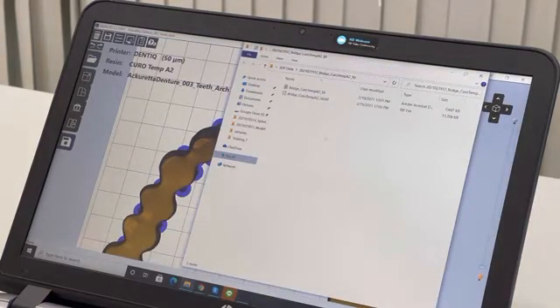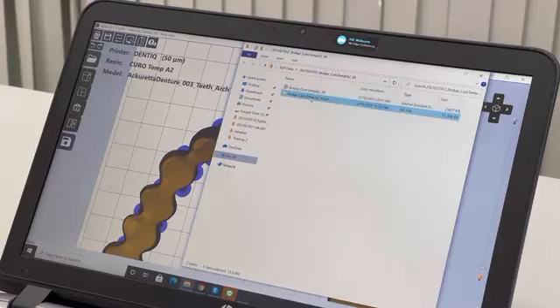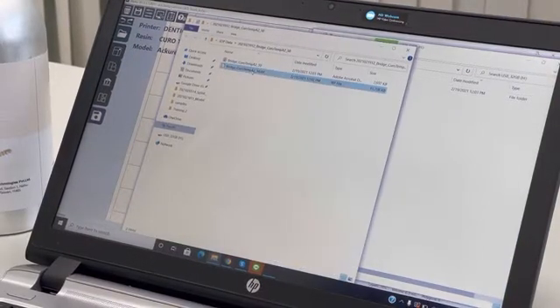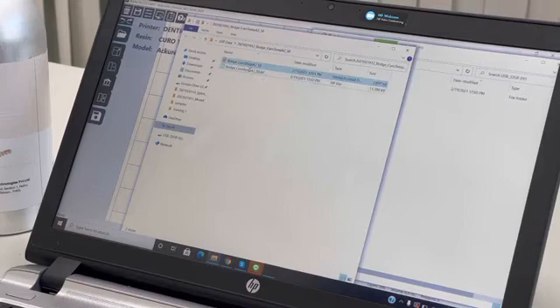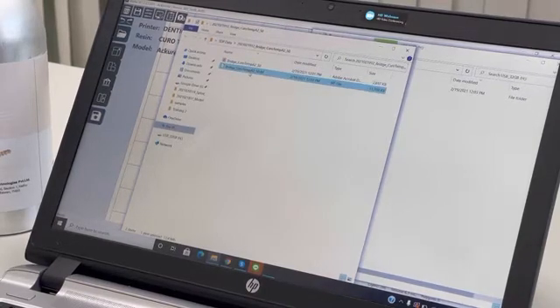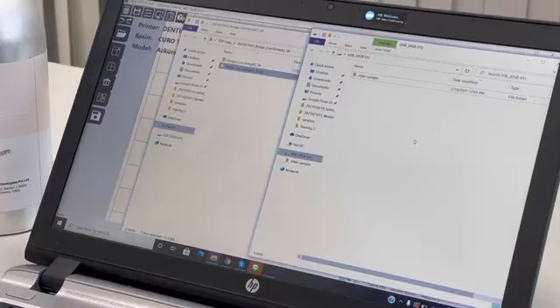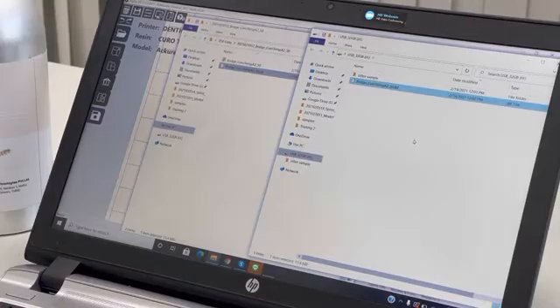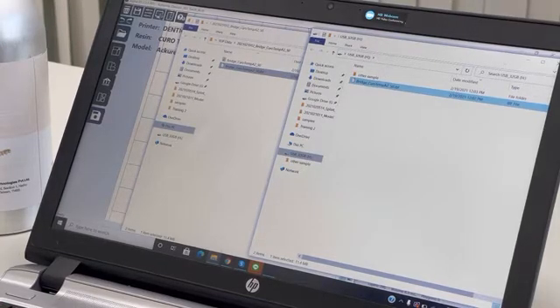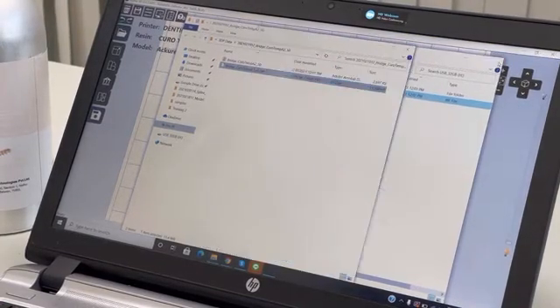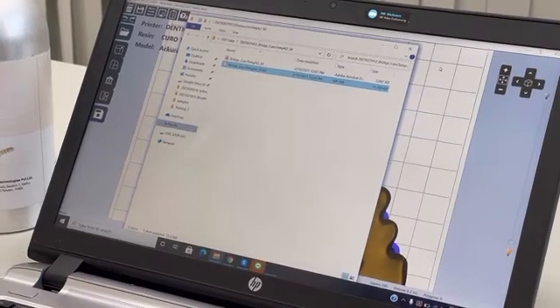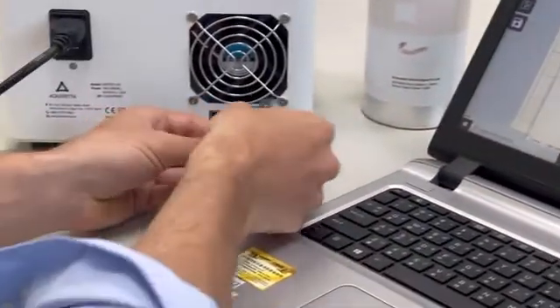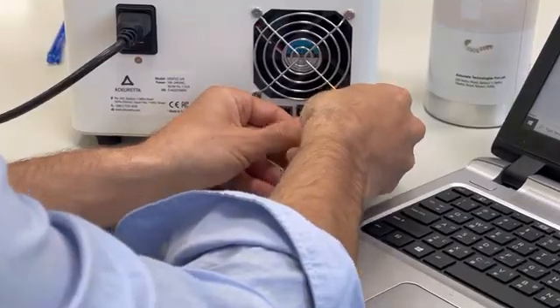Now you can see here my project file and my print file. As I said before, now we have our project file and my print file. I will copy-paste my print file to my USB folder here. Then I will move my USB and bring it to the printer.